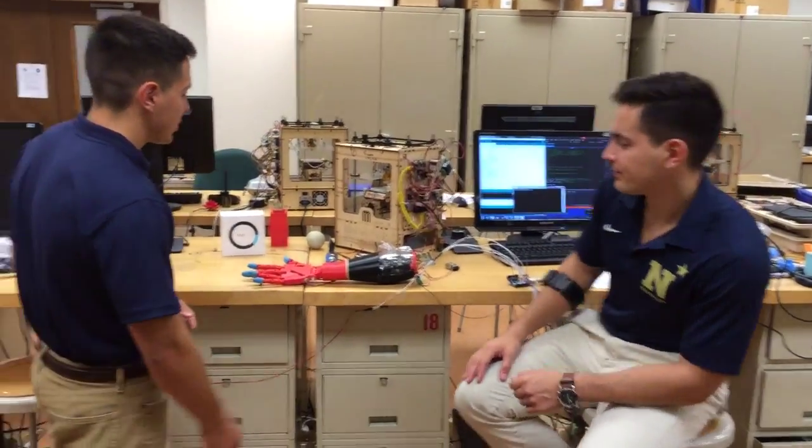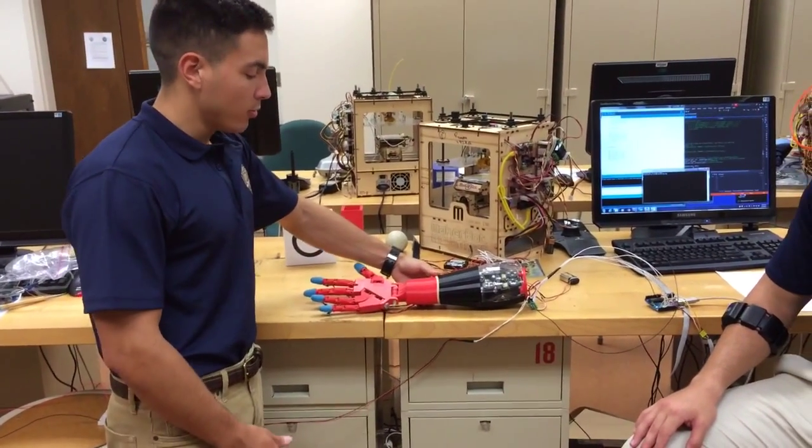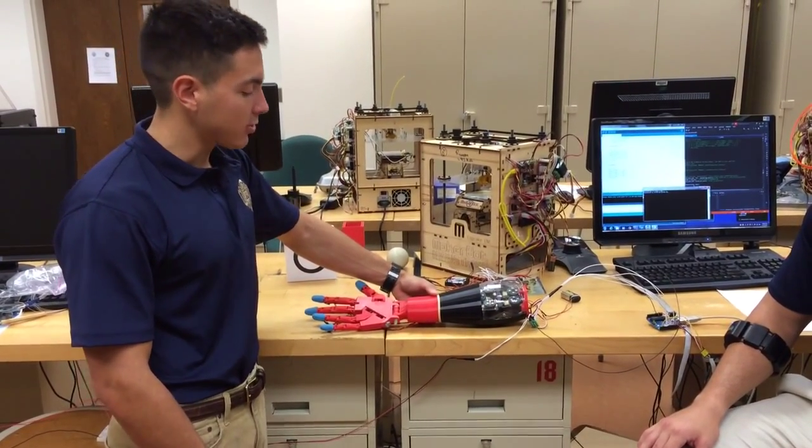Hi, I'm James Muskoviak and I'm John Muskoviak. We're at the United States Naval Academy in the Systems Engineering Department and we're going to show you our capstone. As you can see, we have a prosthetic limb right here. We designed it and created it via 3D manufacturing.